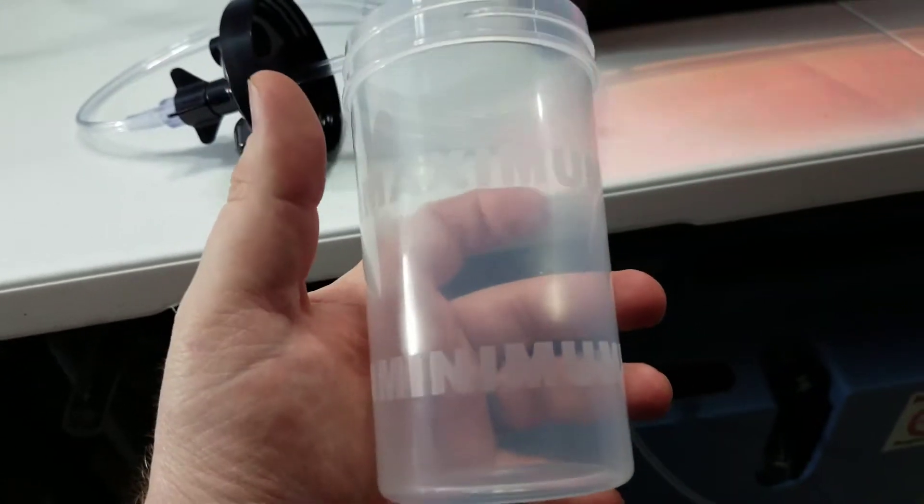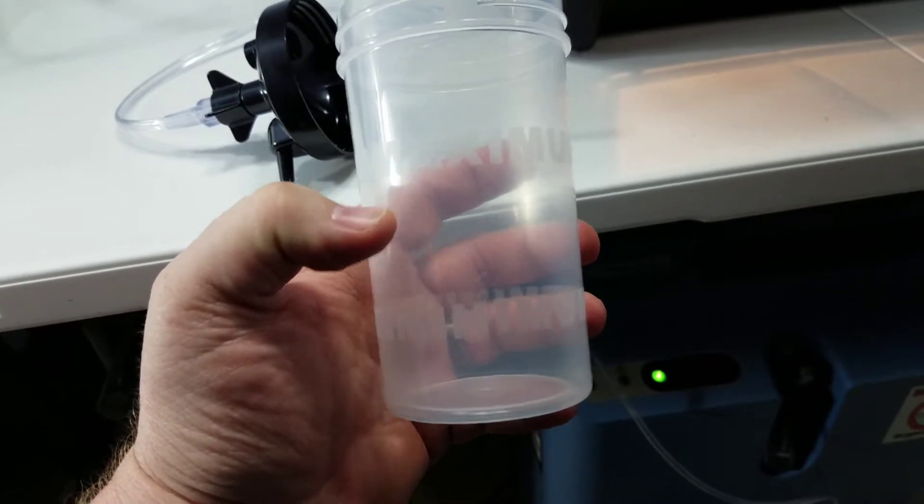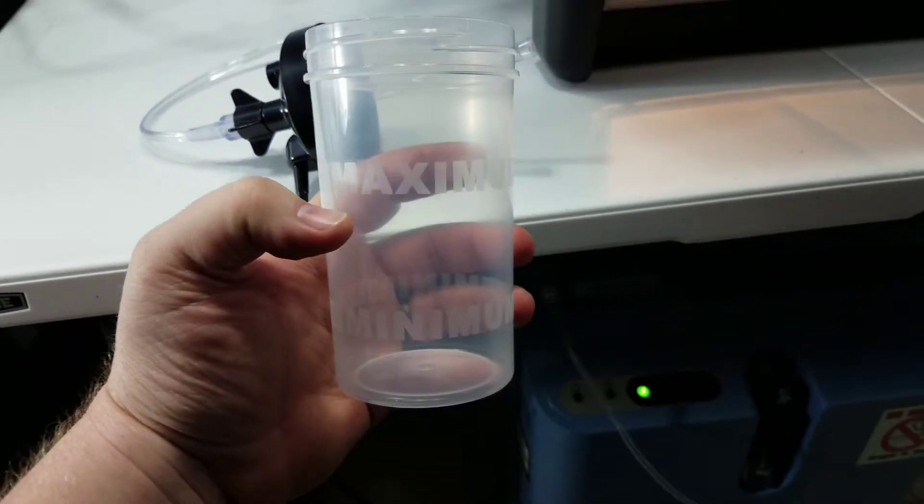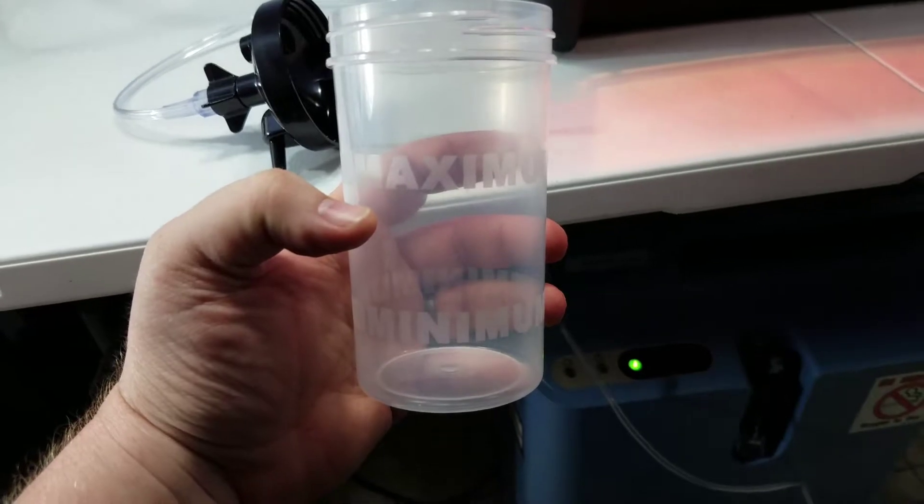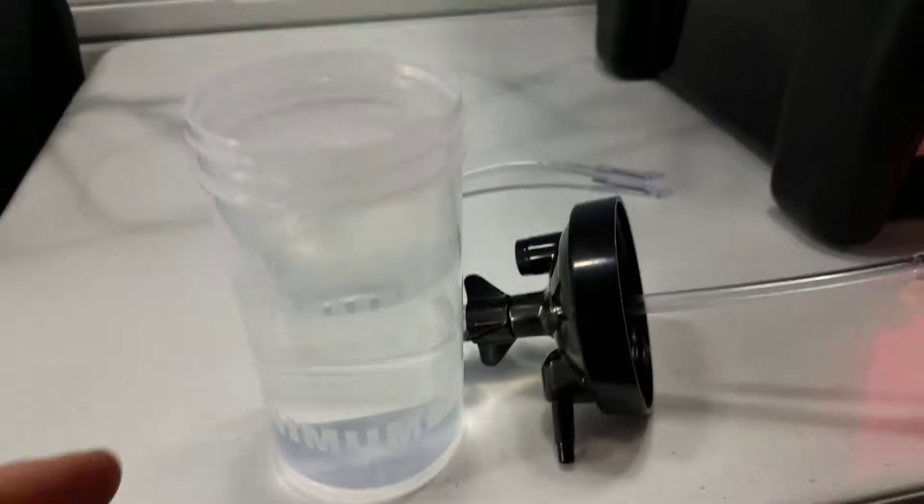I'm gonna fill this up and be back in here just a second to show you how to hook it up to your concentrator. Okay, so I'm back and I've got that filled to the maximum line there with distilled water.